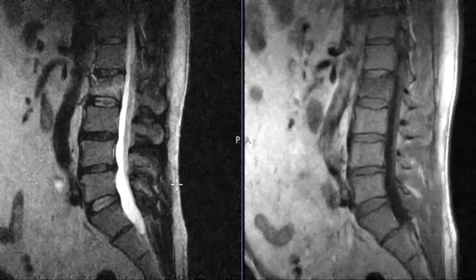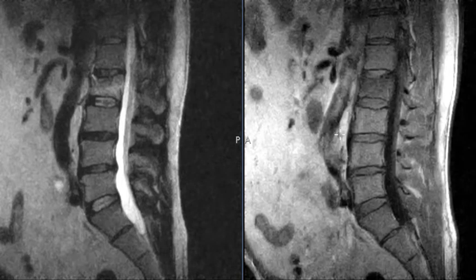Hello, this is Dr. Gay from FirstLake MRI. This is a 56-year-old gentleman who had an injury on his jet ski. He came down hard and felt pain in his back a couple weeks ago. He's had continued pain, and this is a lumbar spine MRI looking at the patient in profile on two images.